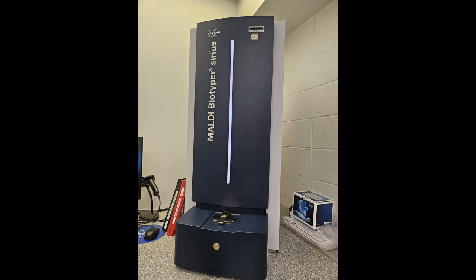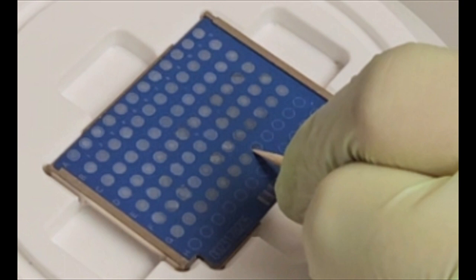First on the list of things to learn about is the inoculation plate. This piece is small and has many circular targets arranged into lines across its face. Each target is a potential spot to inoculate an unknown organism, as will be demonstrated later in this video. It is possible to use multiple spots with the same organism to increase the chances of success in identification, but single spots will be used in this demonstration.